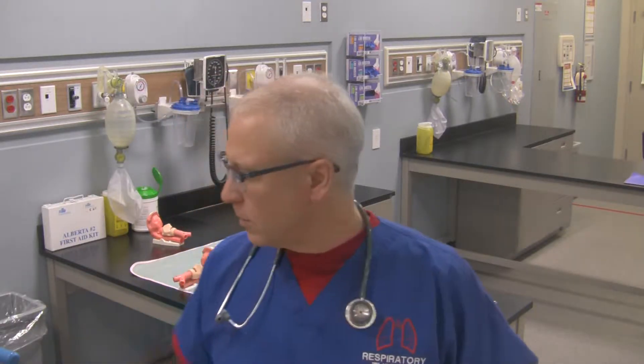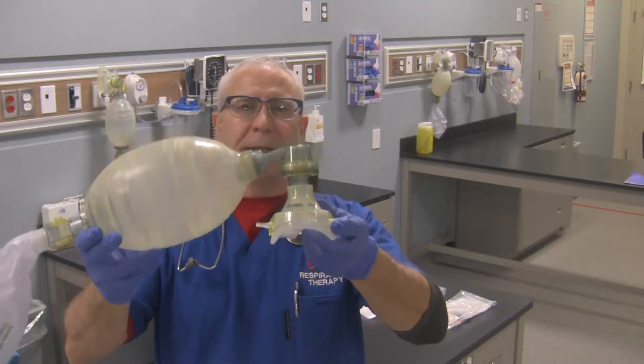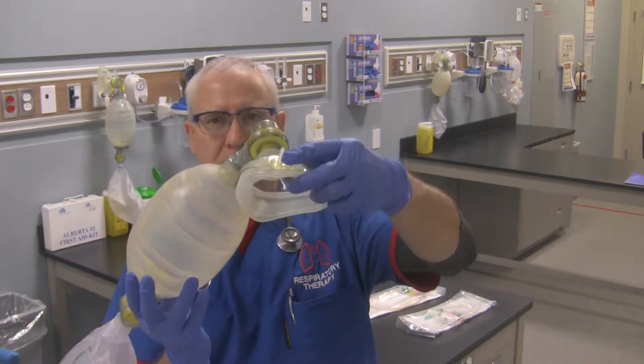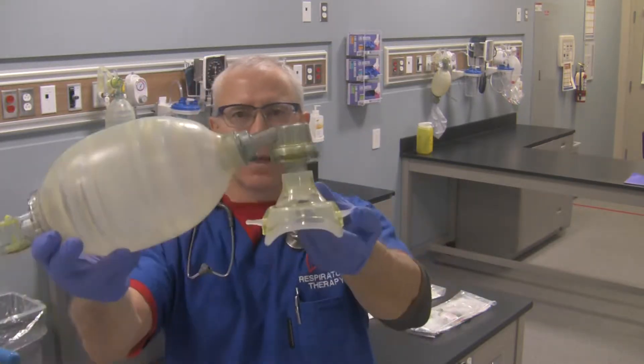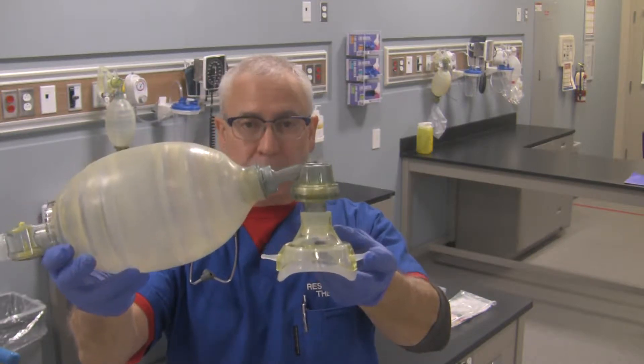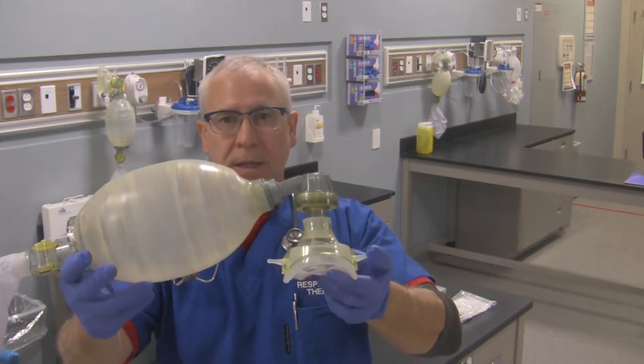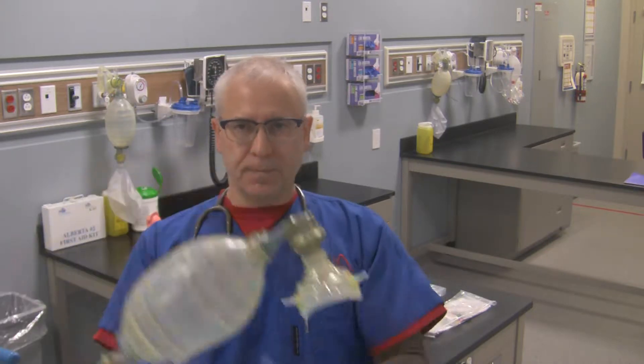Hey, how's it going? This is George again. What I'd like to do with this video is demonstrate how to switch over from bag valve mask BVM to bag valve tube ventilation. Bag valve mask ventilation means ventilating the patient with the mask only. How do you switch over once an airway is in place, like the endotracheal tube or tracheotomy tube, and do bag valve tube ventilation?